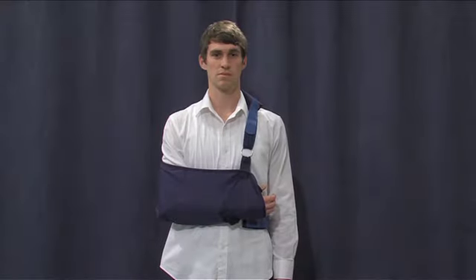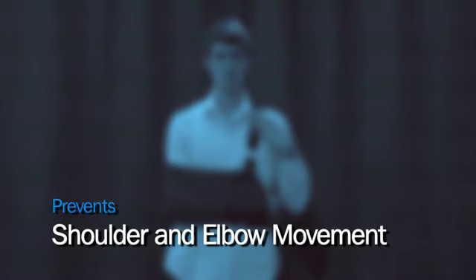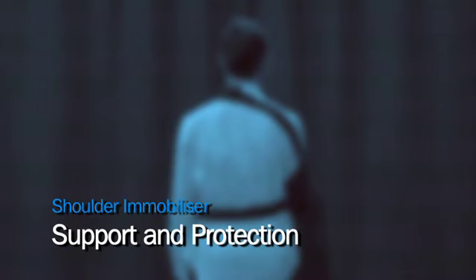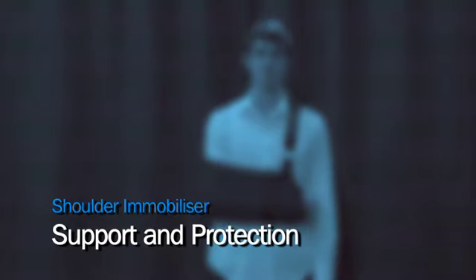The sling is designed to prevent shoulder rotation and helps minimise shoulder and elbow movement. It is universal, which means it can be worn on either arm, so it doesn't matter if your left or right shoulder has been operated on. This type of sling, commonly referred to as a shoulder immobiliser, is used after shoulder surgery to offer support and protection. Sometimes it is also used following other upper limb surgery or for fracture treatment.